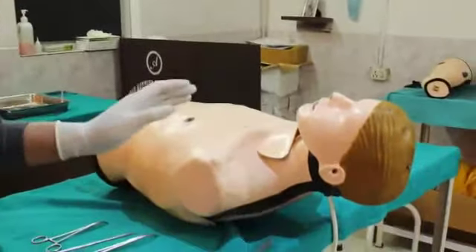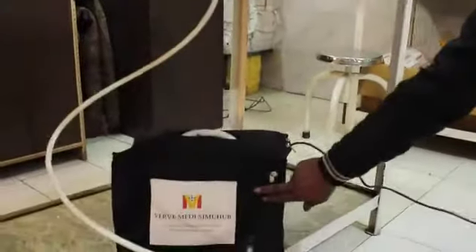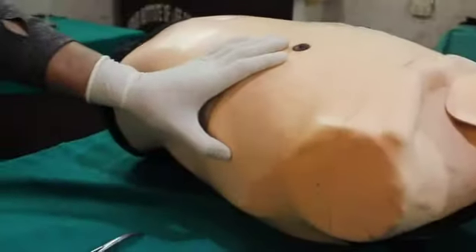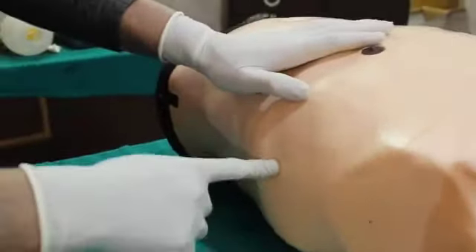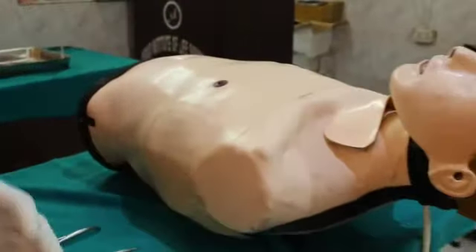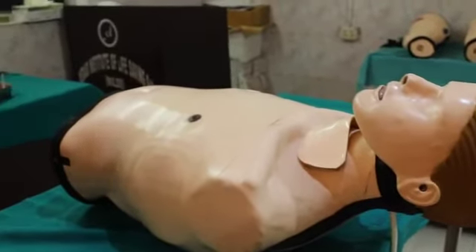Number one, when you attach this mannequin to the ventilator simulator, then the mannequin starts breathing. In a patient of pneumothorax, the patient is tachypneic, so is the mannequin. Second feature is that when you insert ICD and when you put your finger inside, then you can feel inflation and deflation of the lung. And thirdly, when you attach the chest tube with the underwater seal drainage, then in this mannequin you can see the bubbling in the underwater seal drainage.